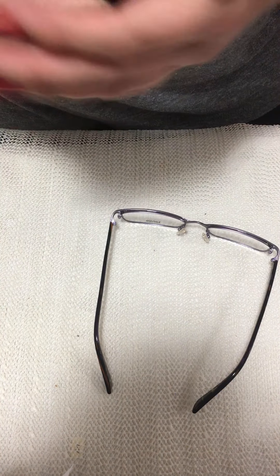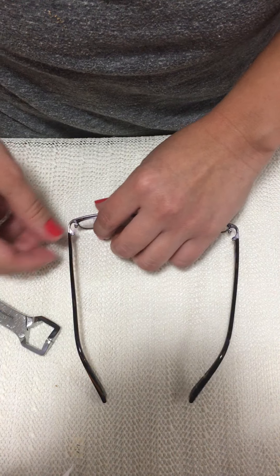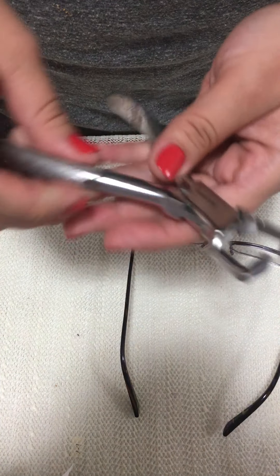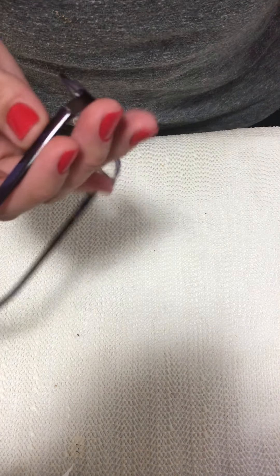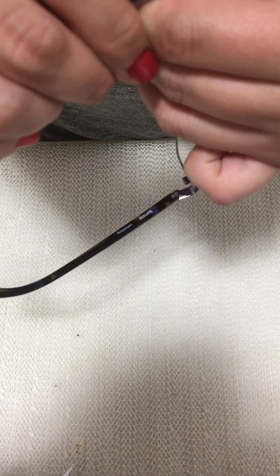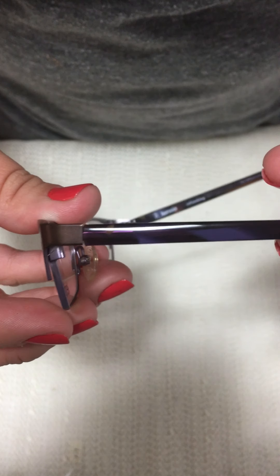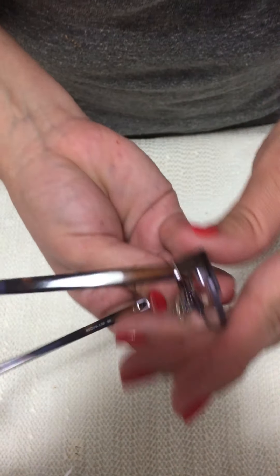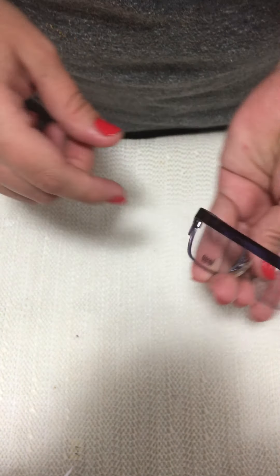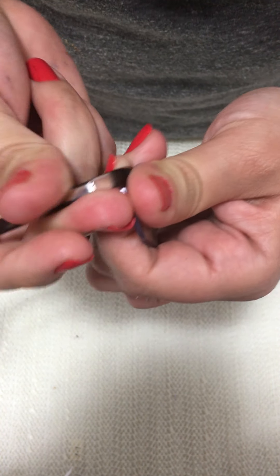I'm going to use the wide angling plier to take away the retroscopic tilt and put more of an orthoscopic or a little bit of pantoscopic tilt. I could use the wide angling plier or my fingers — I'll use my fingers. I'll press really hard on the end piece and bend the temple. Now it's looking a lot better. I'll do the same thing to the other side.